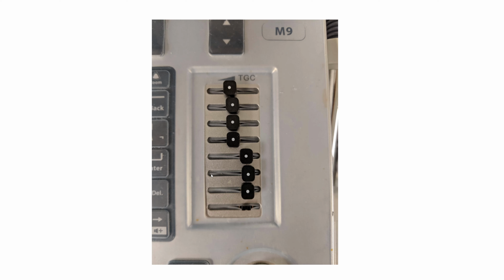On machines like the Sonos, they're not going to give you these sonographer, ultrasound tech level sliders to play with, but there are near and far field gain adjustments, typically knobs, and they typically are just right below the overall gain. So if the TGCs make you nervous, you're an early stage learner, you can just ignore those near and far field gains and just adjust the overall gain, and that'll probably be more than fine to look at the thing you want to look at.